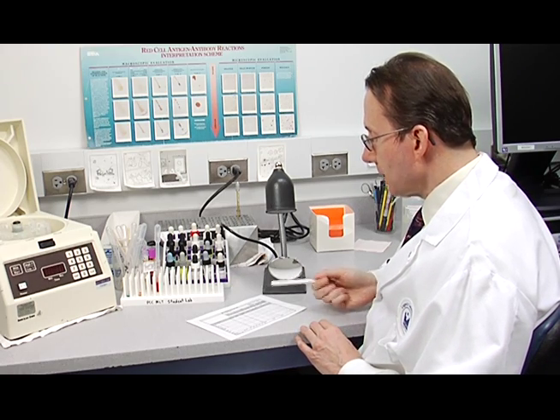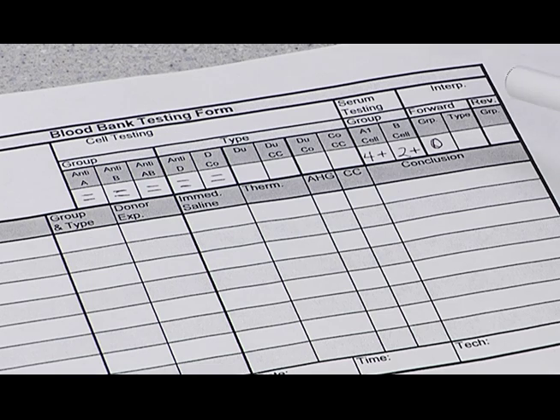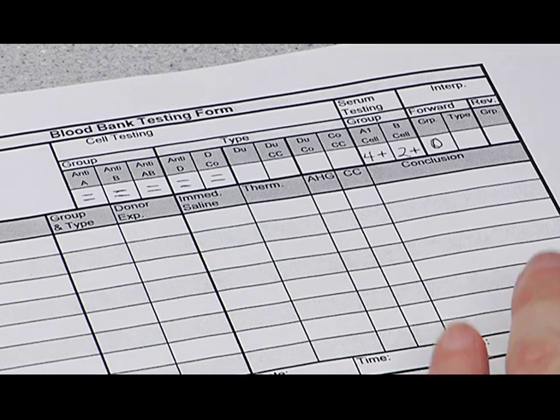The rest of the interpretation is the reverse group, and so we look under serum testing. And the group here, you can see that the A1 cell is a 4+, the B cell is a 2+. They're both positive, so that confirms the O. And we'll record that result right here.